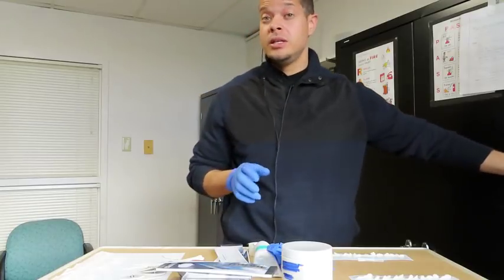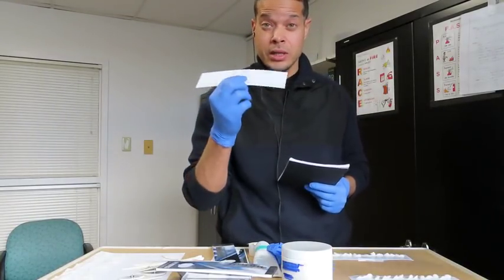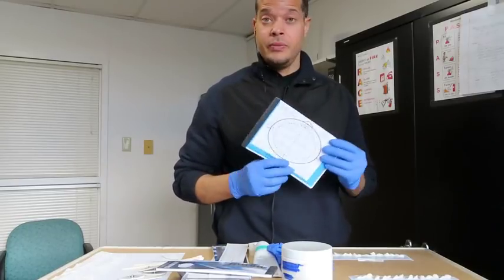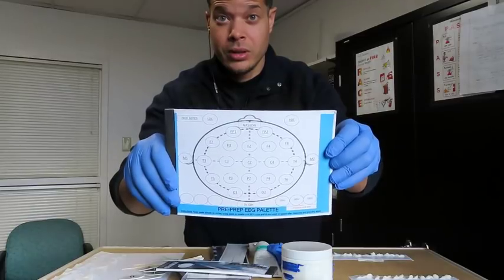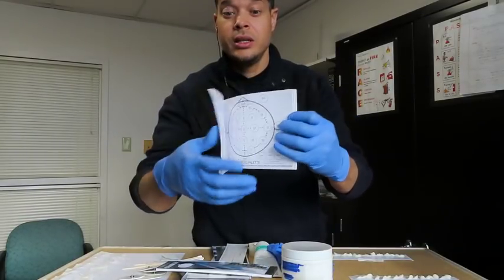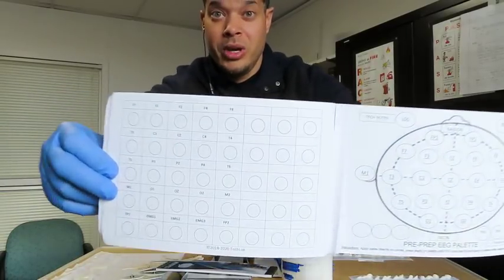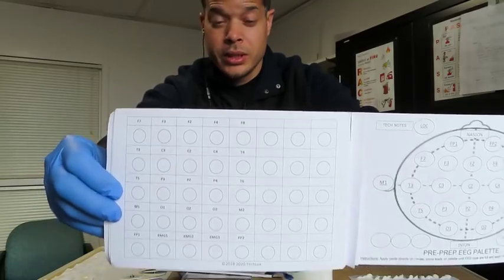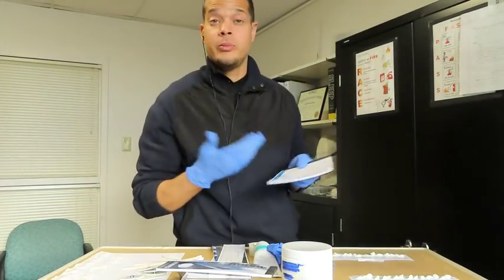If you want to use it for EEG, you're more than welcome to use it, but there's not as many leads for a full 10-20 setup. But this is the EEG one for EEG folks, or long extended montages for patients. This is the system in place. One is there, or the back page has another bubble system. So again, you can use it if you want to help your setups.